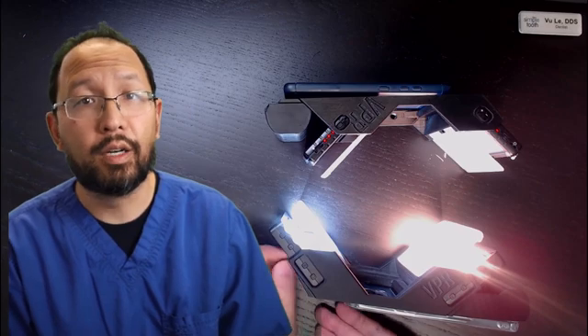The diffuser panels are larger than the old model and they're also solid — there's no venting on these ones. This manufacturer decided to use a spacer instead, but we space it even further for the diffusion effect. That spacing approach is actually in my patent if you want to go read it.